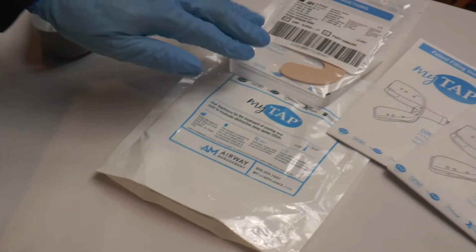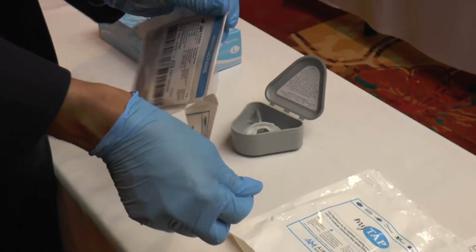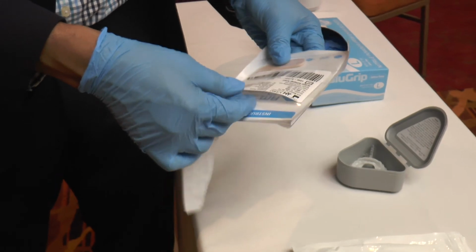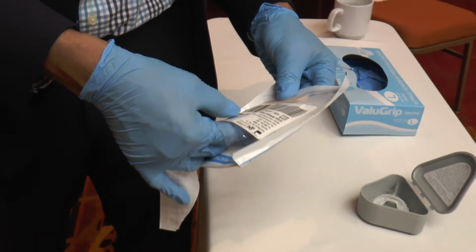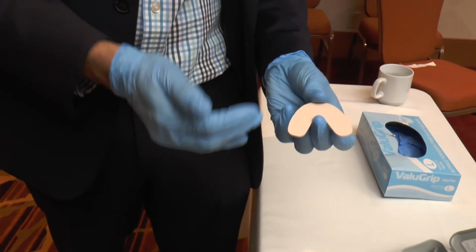And then you also have this morning aligner. What you have to understand is when these patients wear these devices, which bring the lower jaw forward, there's a tendency the next morning that they'll notice a slight bite change. What this AM aligner allows us to do is get their bite back.